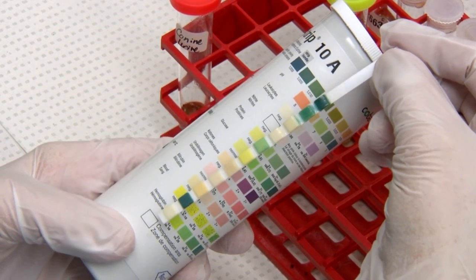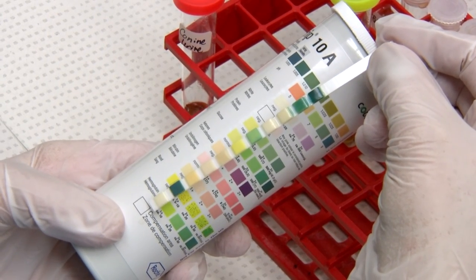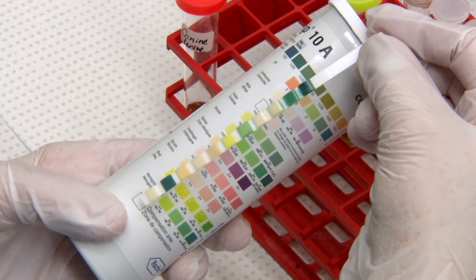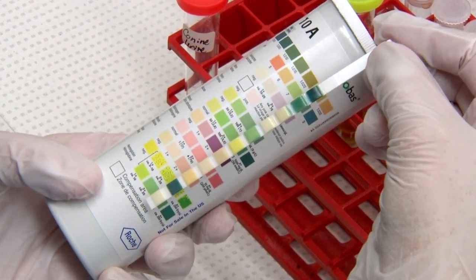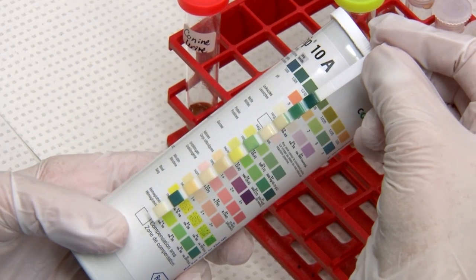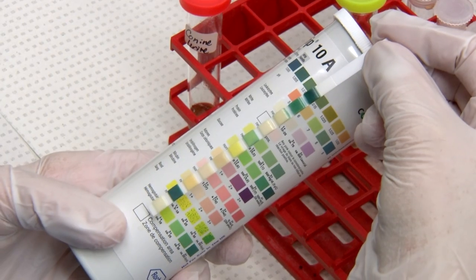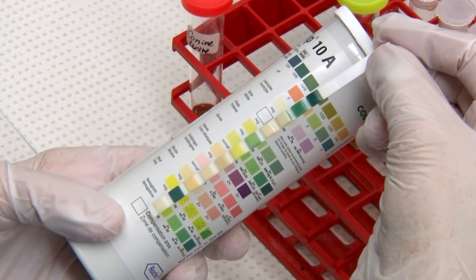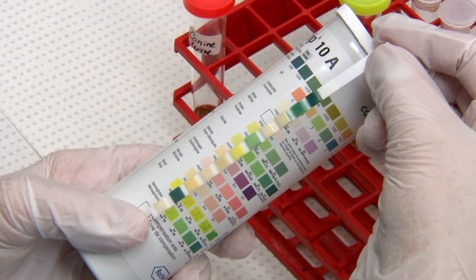Protein is reported as negative, trace, and up to three plus. Glucose is the next square and is also reported as negative up to three plus. For ketones, what you're looking for is a purple colour, reported up to three plus. Sometimes you'll see a brown colour, and that is interference.